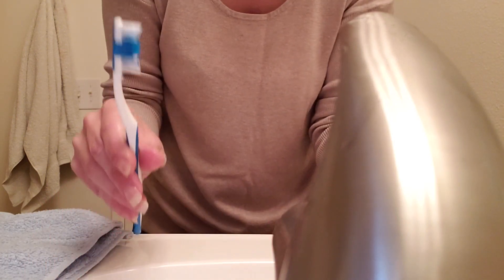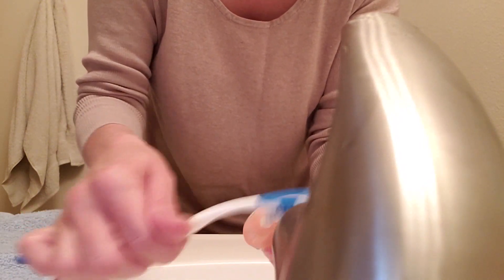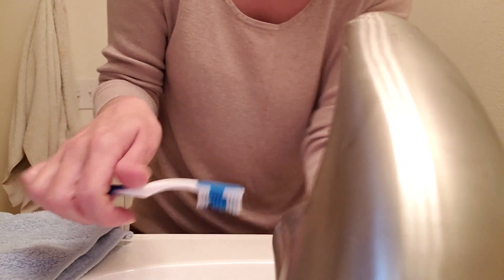I'm going to take my soft bristle brush and just go in circular motions to make sure it's clean. They haven't been in very long this morning anyway. All right, so there's that.